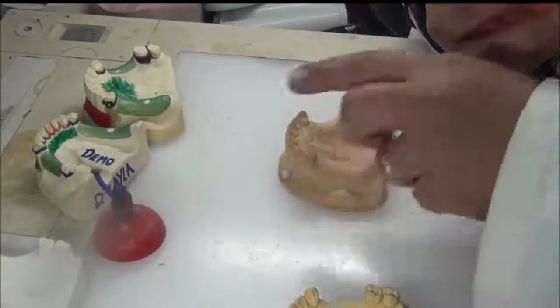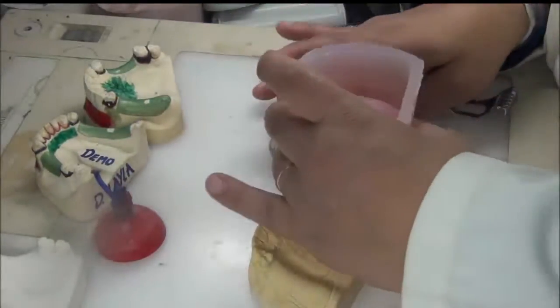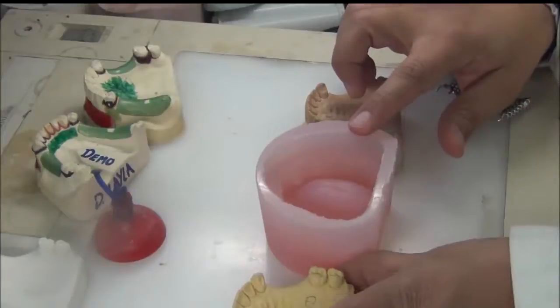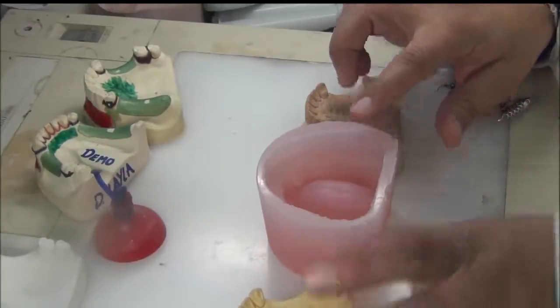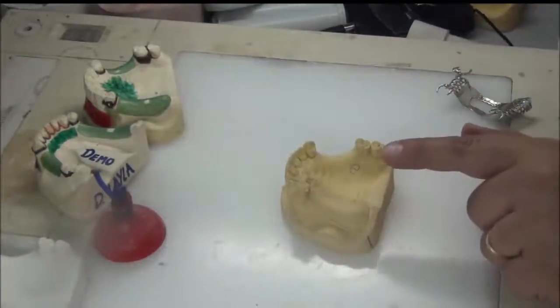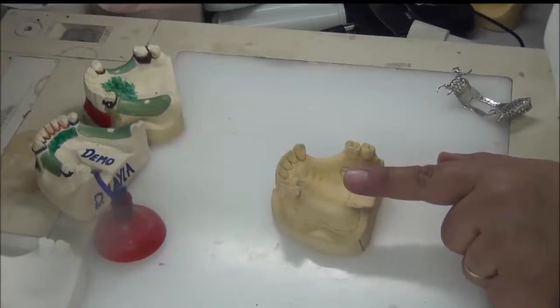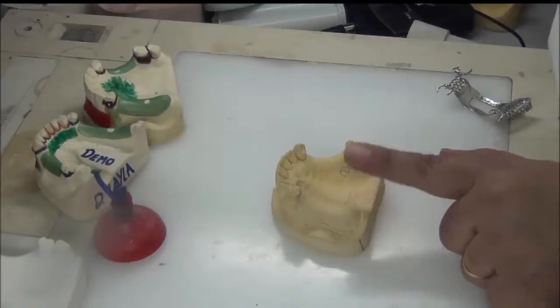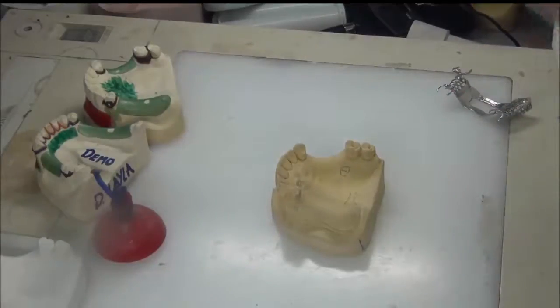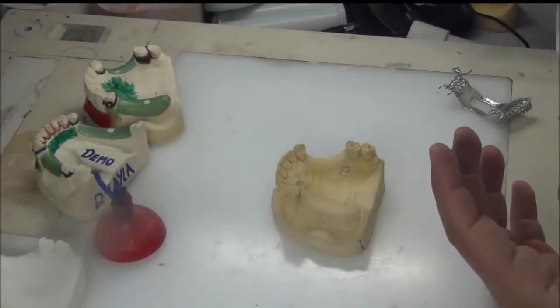The refractory cast is a duplicate of the secondary cast. But before doing the duplication step, we have to prepare the cast in a specific way — and this is the purpose of today's lab. Today we are only talking about preparation of the secondary cast. This lab, and the two labs after, will all cover lab two, which is the most expanded lab in chrome cobalt procedure with the most steps.